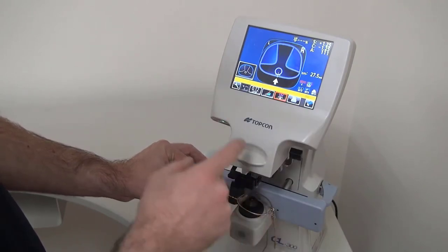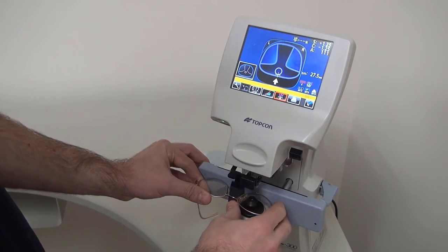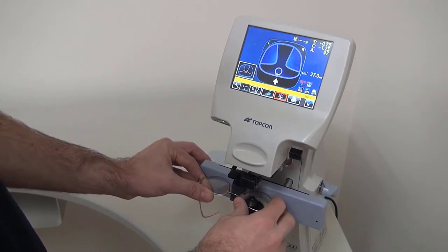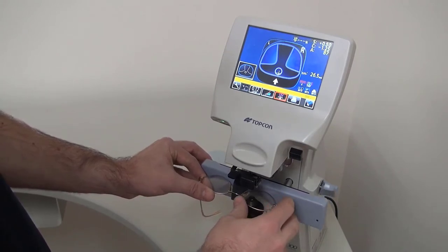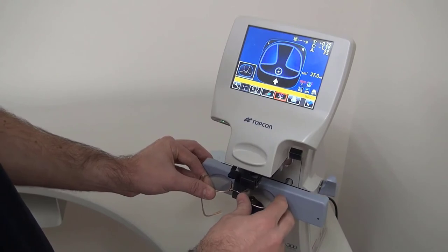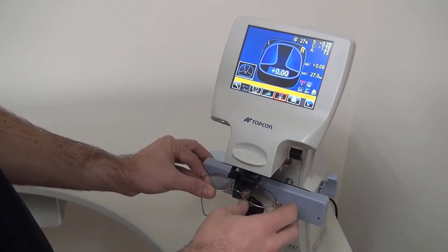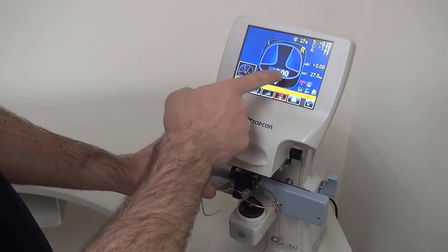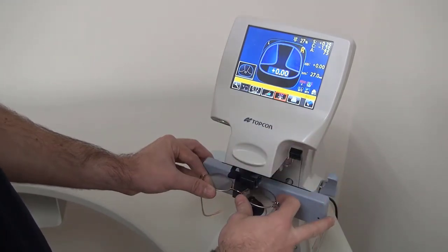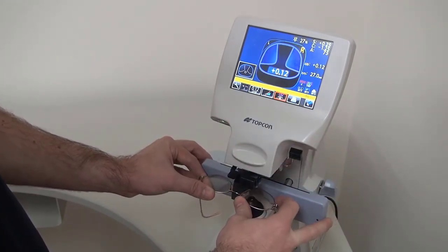So when you're doing a progressive, I'm now trying to line up my distance vision, and I'm just going to get that cross in the center of the circle, and I'm just following this arrow here. So I'm just going to move it toward the center. Once it beeps, it's now locked in, and it's asking me for the add power.